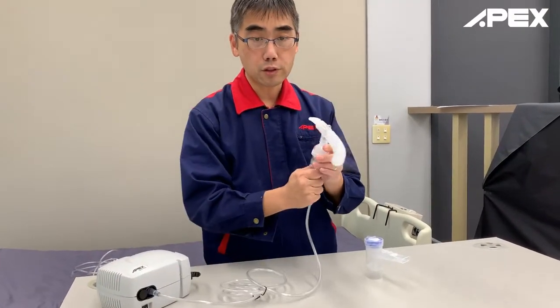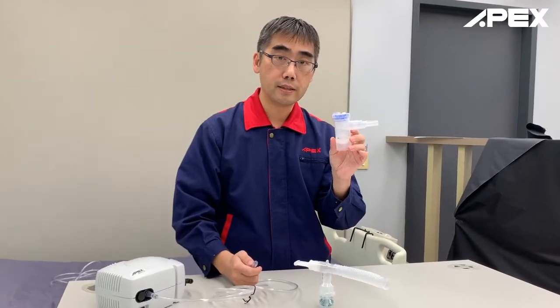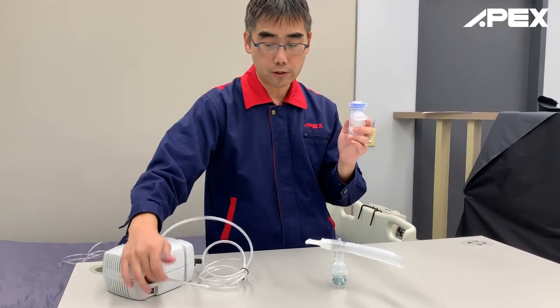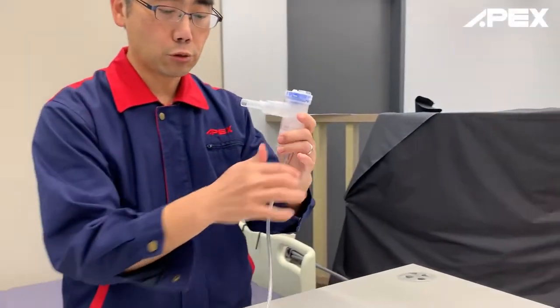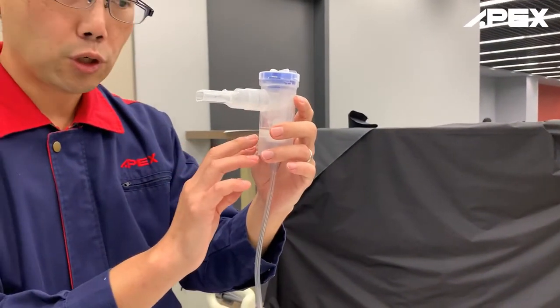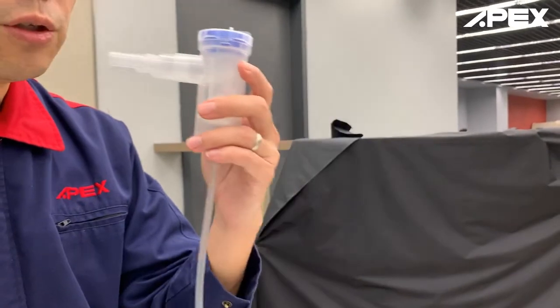The difference between the continuous type and our new innovation — the breath-actuated nebulizer — is that it has control based on your breathing. Let me connect and switch on. You will see that even though the compressor is on, the medication will be maintained in the container and will not give out aerosol unless you start breathing.